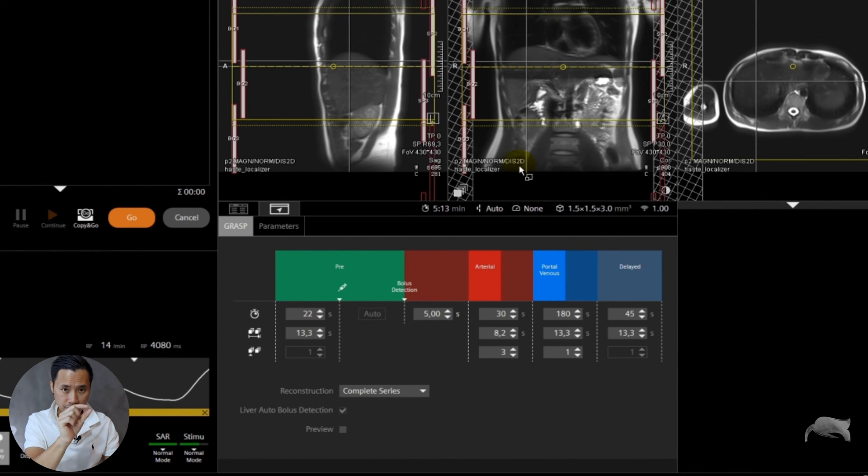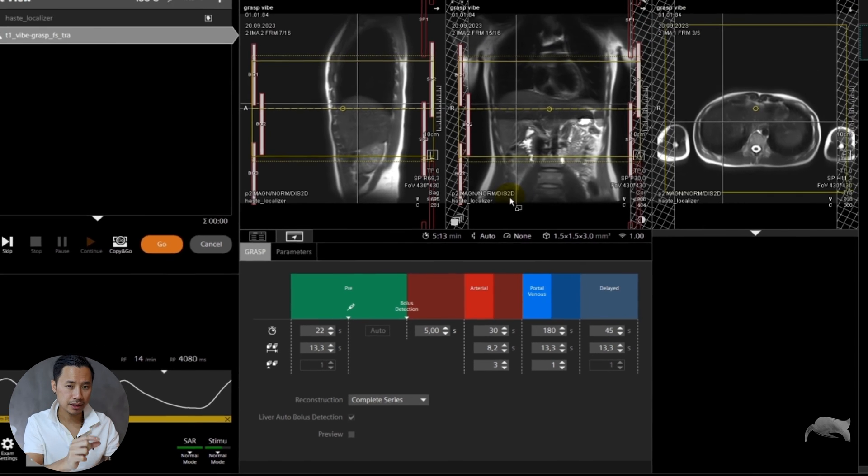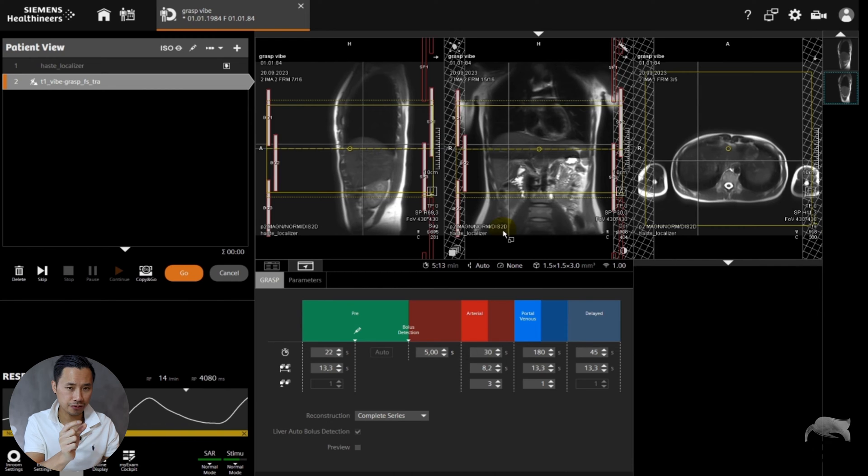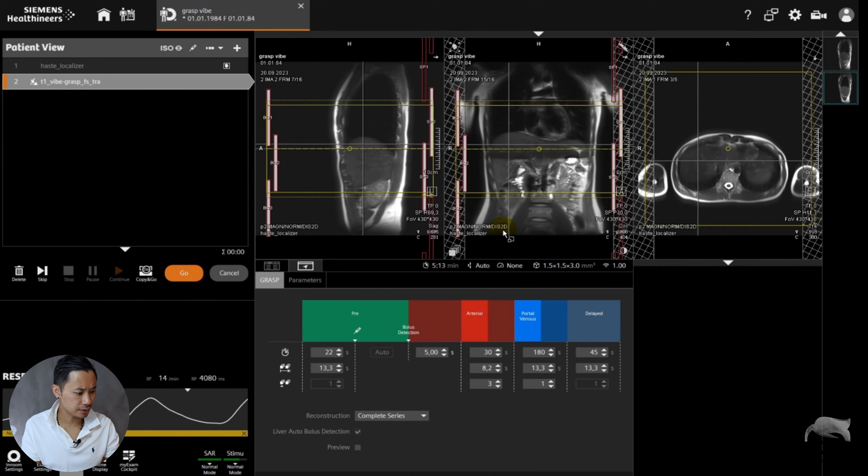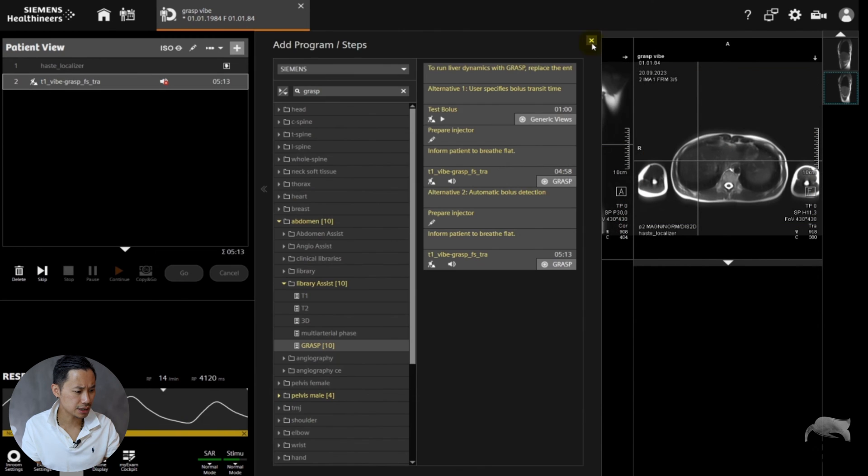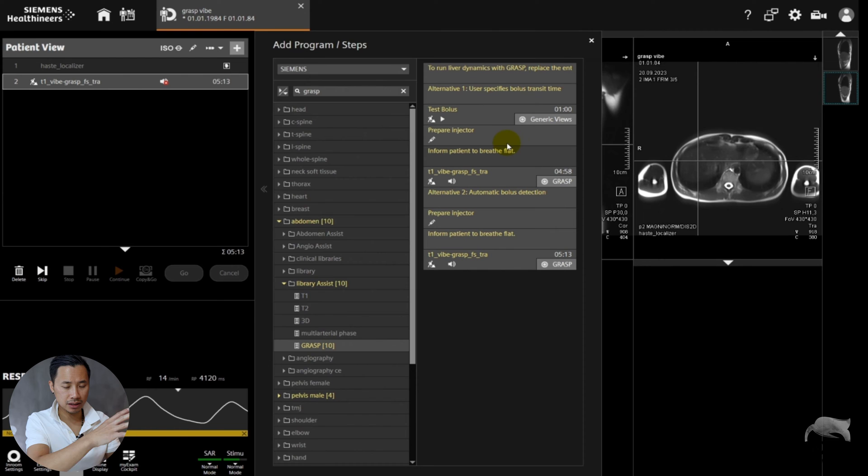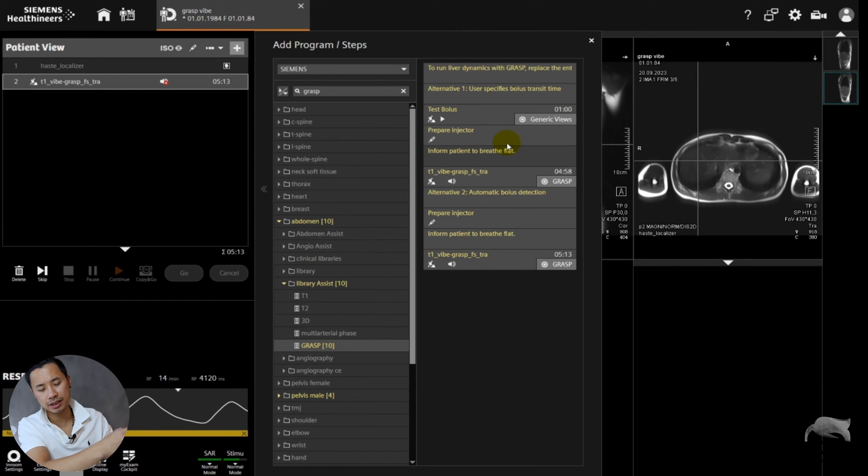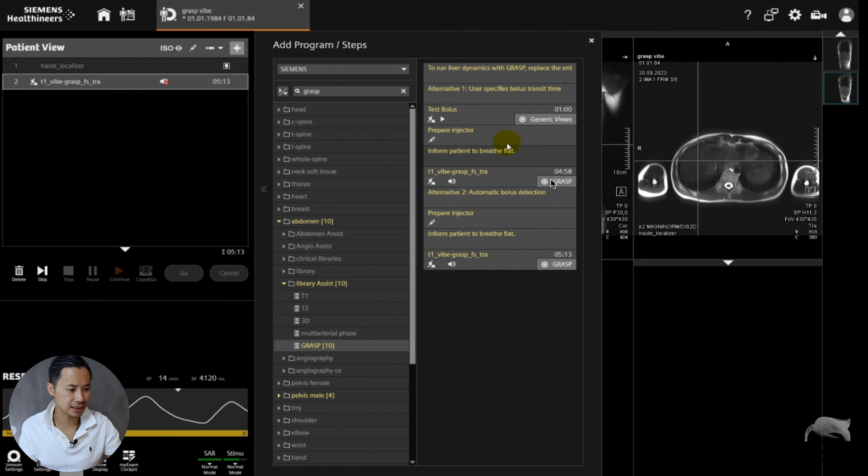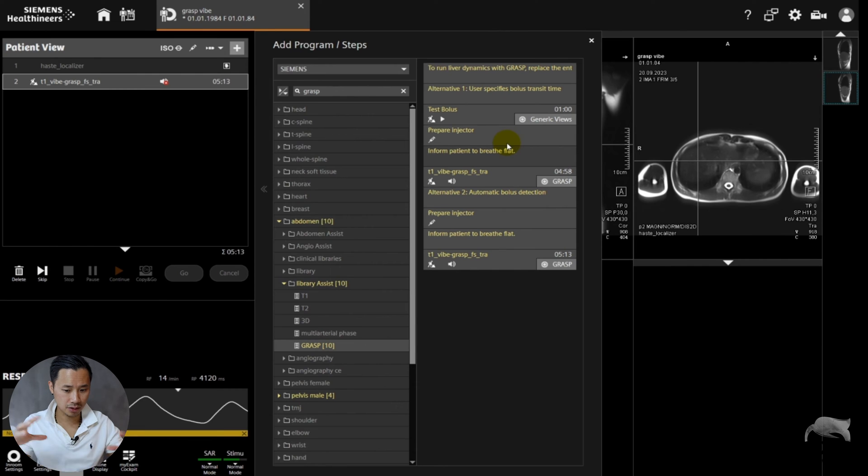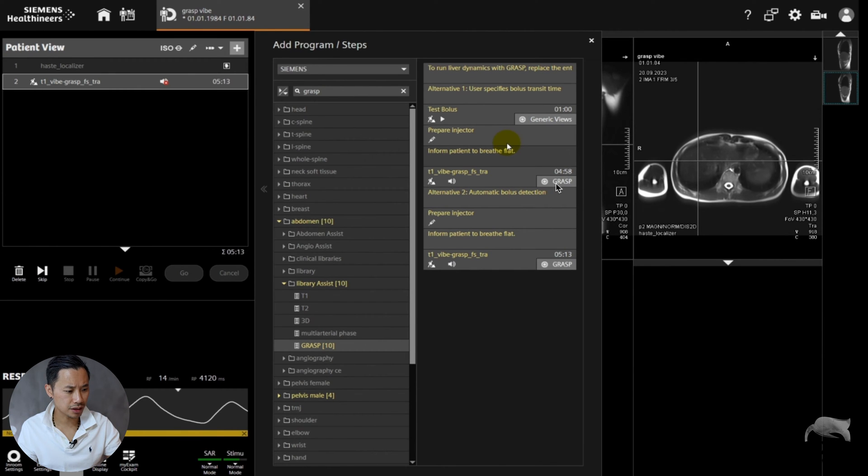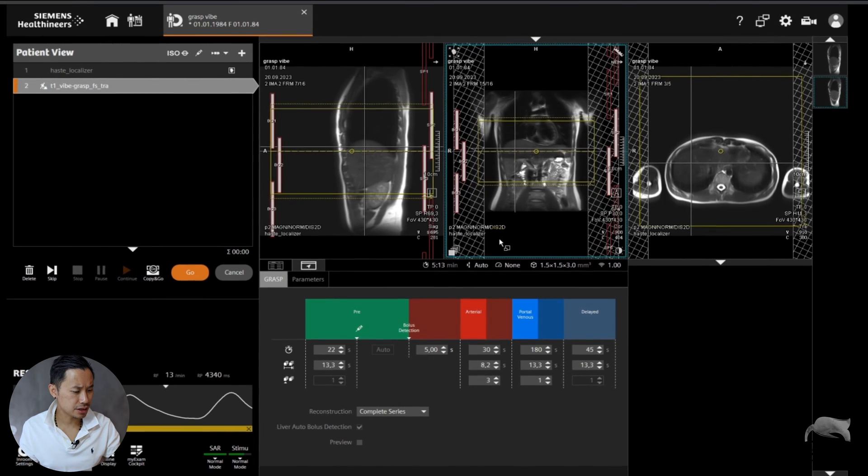The protocol looks like this. If you're missing this part, it's because you don't have the dot engine. I showed you earlier the GRASP dot. Sometimes whenever I'm done with a GRASP VIBE, I try to save it and it's missing this part. Whenever it's missing that part, you won't get the overview of the sequence. What you do is just mark that and drag it to the missing part and save.